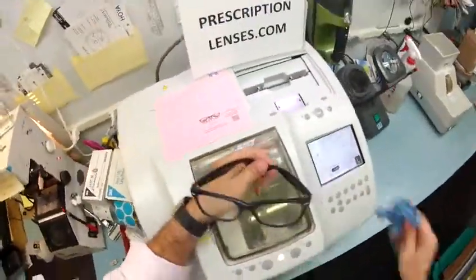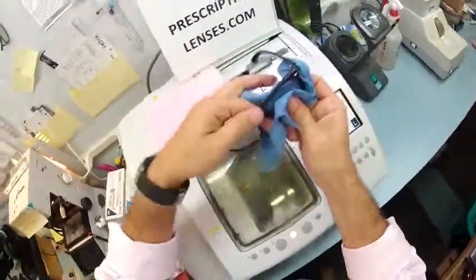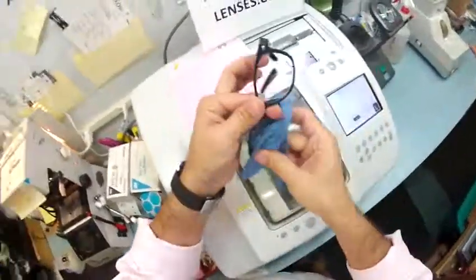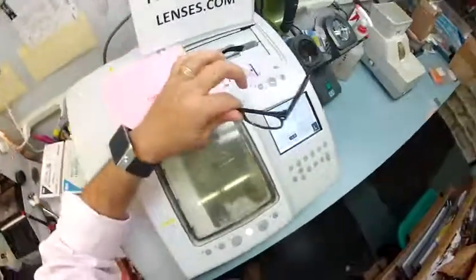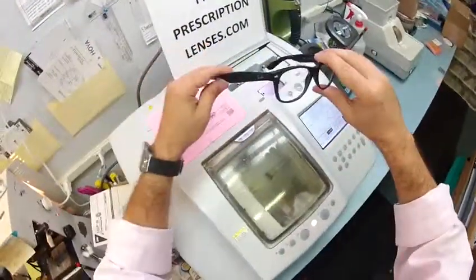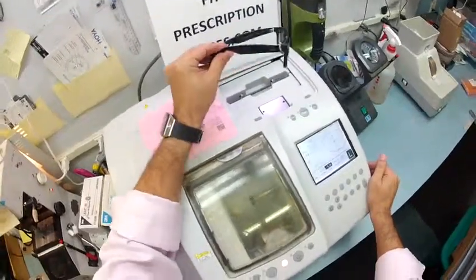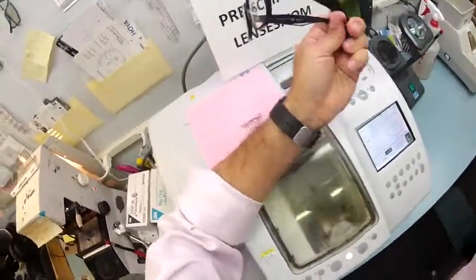If anyone has any questions about what I can and can't do — although there's nothing I can't do with a pair of glasses other than miscut a lens every now and then. Now that there's a witness to it and the whole world will see, it is true: I'm not perfect, although I do come very close. Trina, I hope you enjoyed watching your glasses being made, and hopefully you got to see how I bring that love and feeling back to glasses. Thank you.